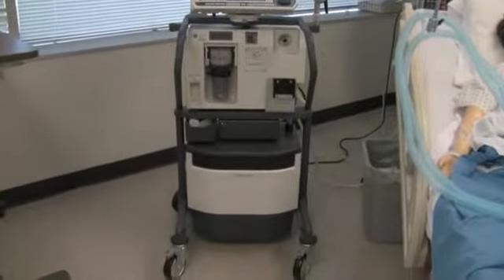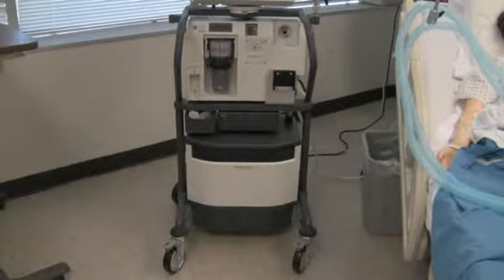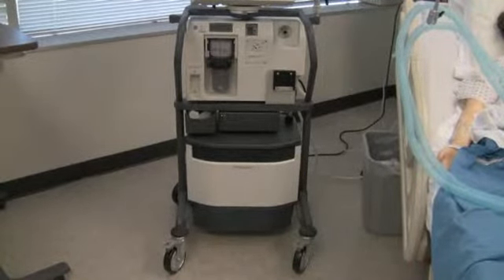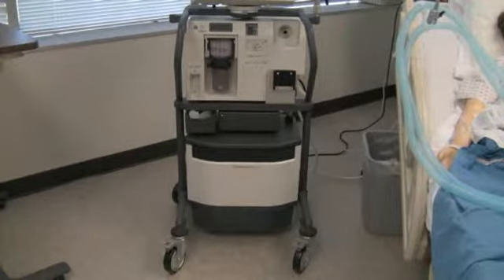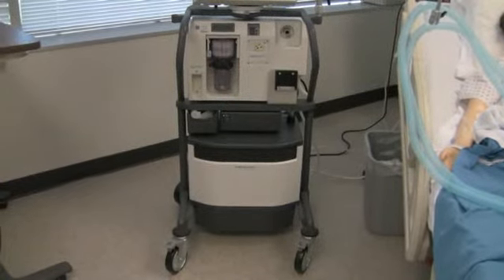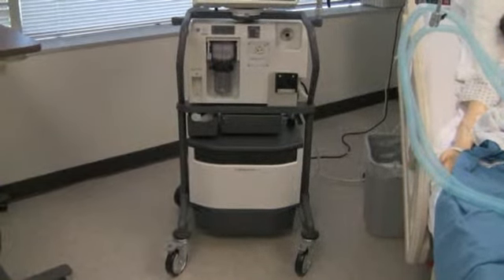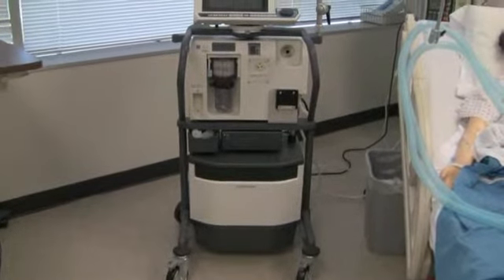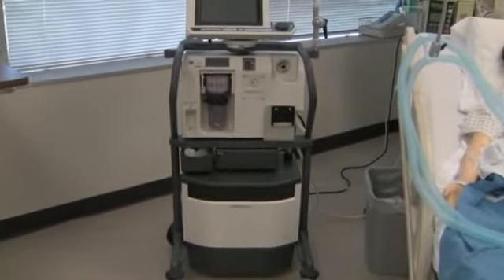So if we do lose our air supply or if we choose to actually use this away from an air supply, we can run off of the compressor. There's a couple of compartments in the bottom of it to help hold supplies.